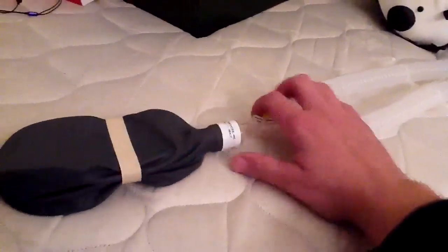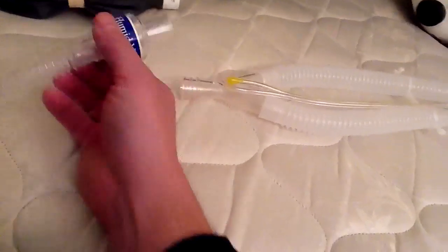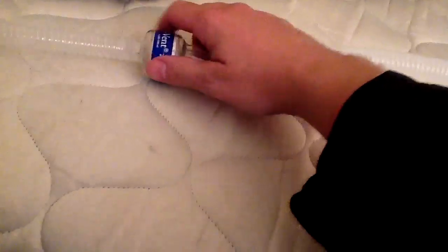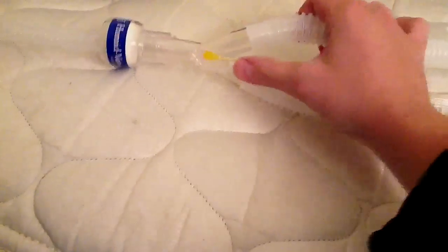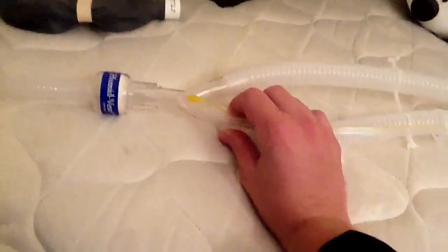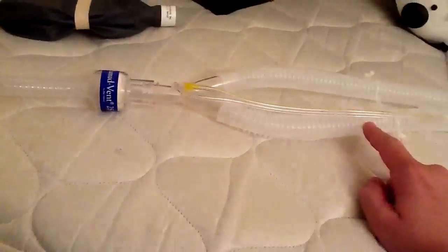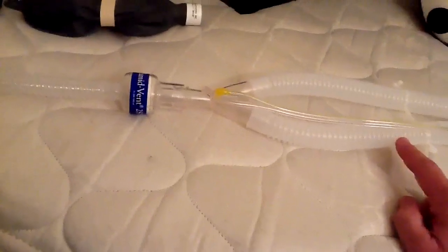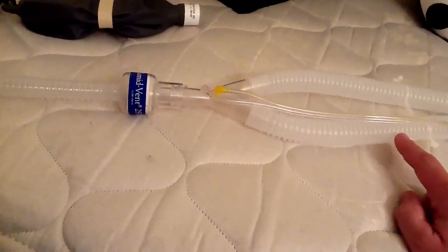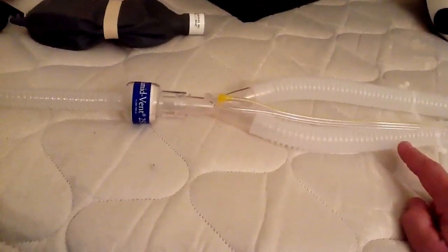What we're looking at right here is the distal end of the circuit — it's actually hooked to a test lung right now. What we like to do is attach an HME, known as a heat and moisture exchanger, also known as an artificial nose. I'll actually attach it to the end of this connection known as the Y. You can see that I have my flow transducing tubing here. The ventilator actually produces about 10 liters per minute of what's known as bias flow, which is constantly flowing through the circuit. That allows for triggering, because this ventilator triggers off of flow as opposed to pressure, which we may be more familiar with — pressure triggering is common, but flow triggering is less familiar.